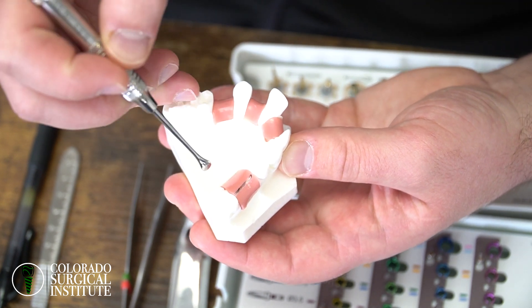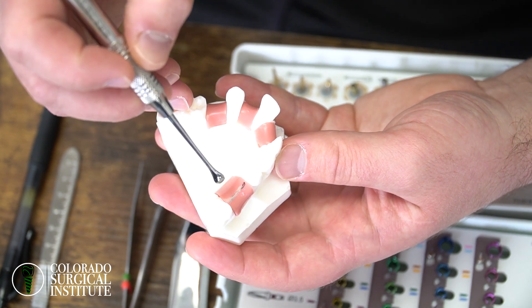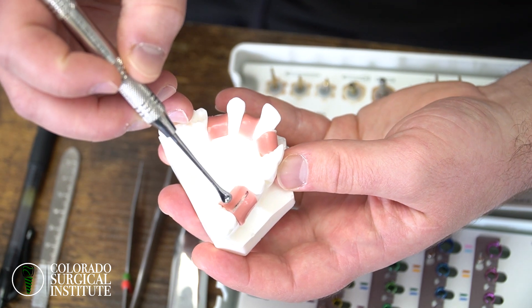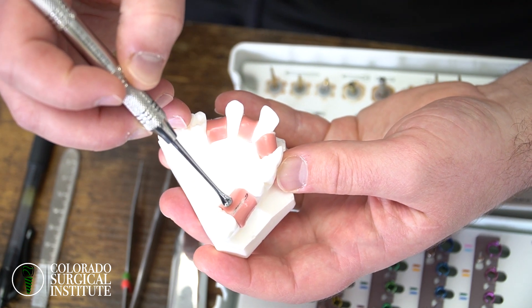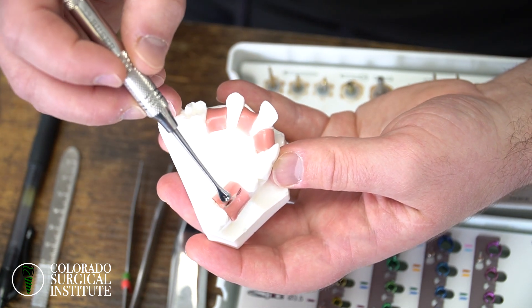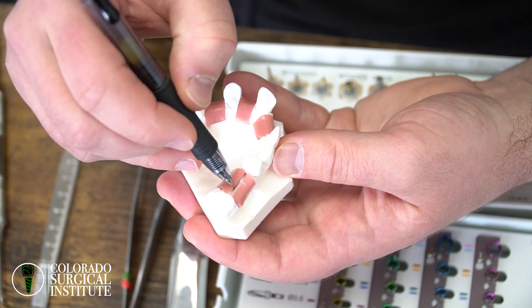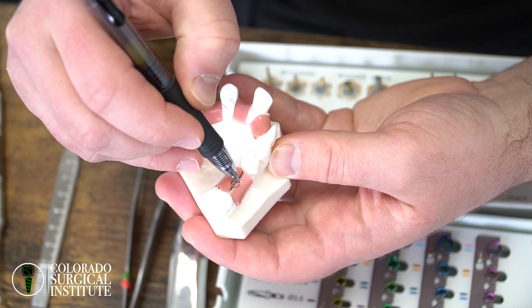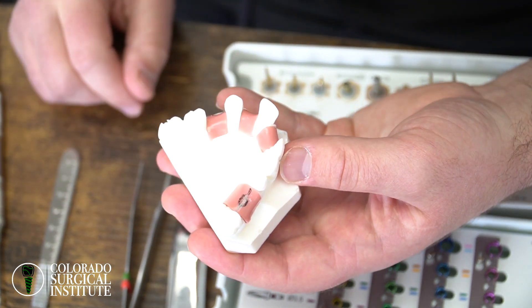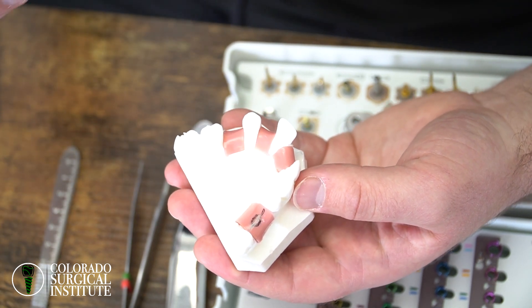If you make an incision in the middle and reflect the flap both ways, and you're placing an implant — by the time you place the implant it should be in the middle of the ridge. But if your incision is also on the middle of the ridge, when you go to suture it closed, your incision line will be right over the top of the implant. In the beginning when you're placing implants, your suturing is going to be that much more important.